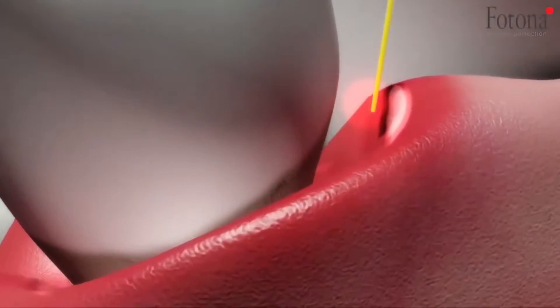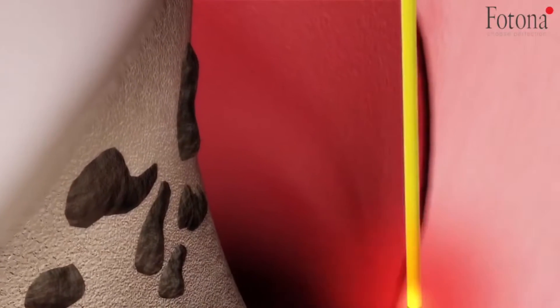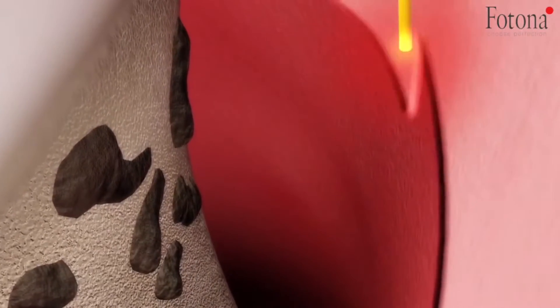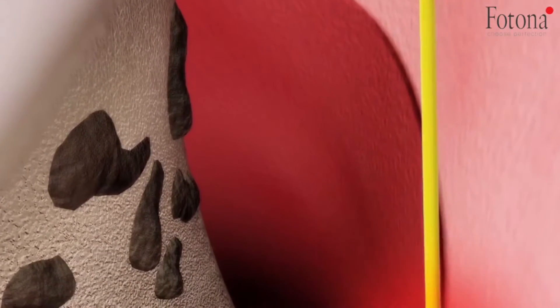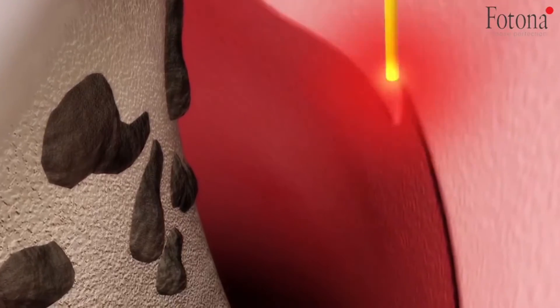In this animated clip, you can see that the laser is being used to remove diseased gum tissue. At the same time, it's performing biostimulation, which is encouraging healing post-treatment.